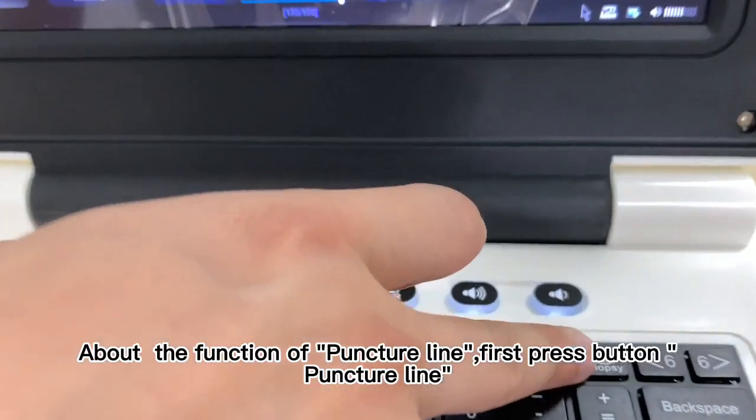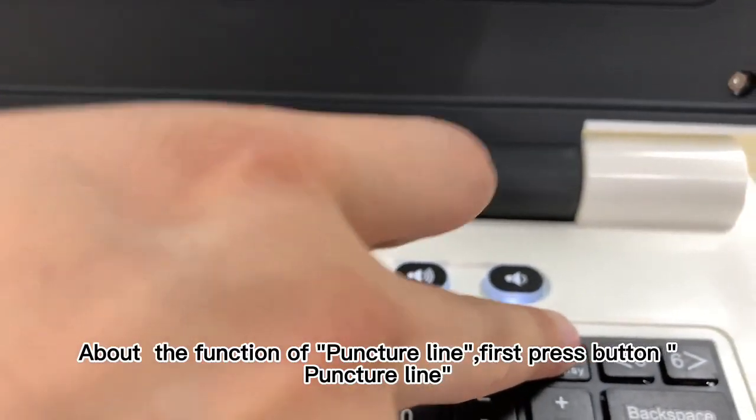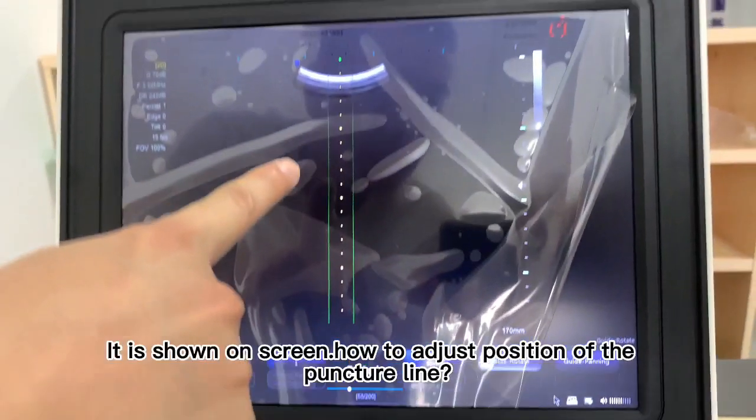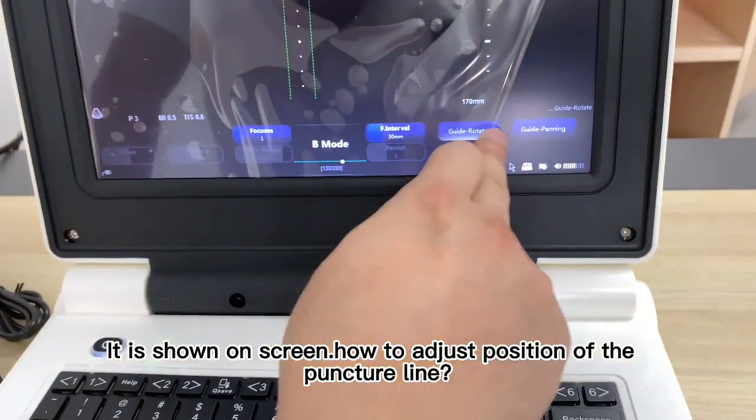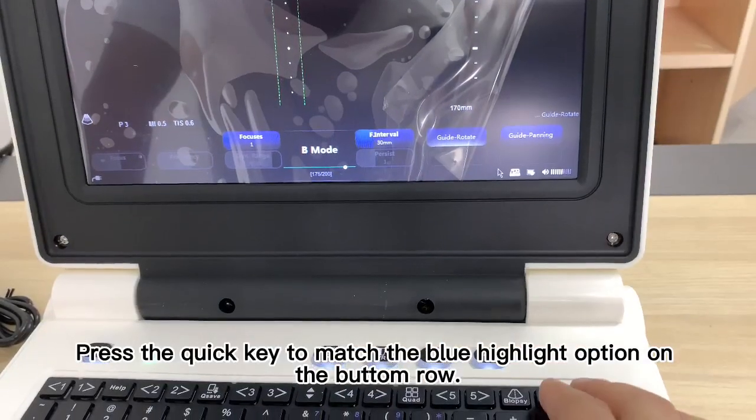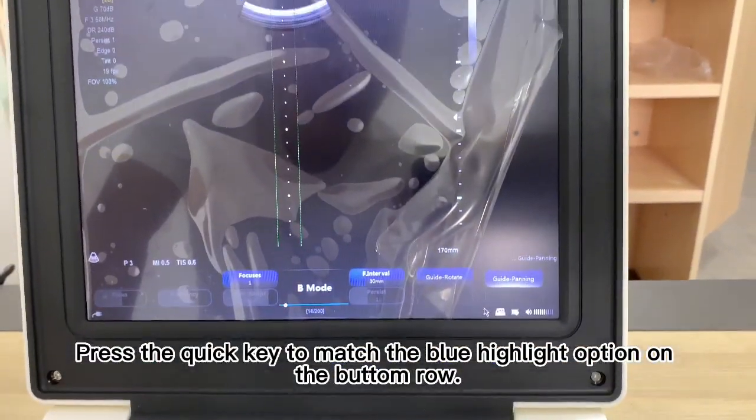About the function of the puncture line, first press the button Puncture Line. It is shown on the screen how to adjust the position of the puncture line. Press the quick key to match the blue highlighted option on the bottom row.